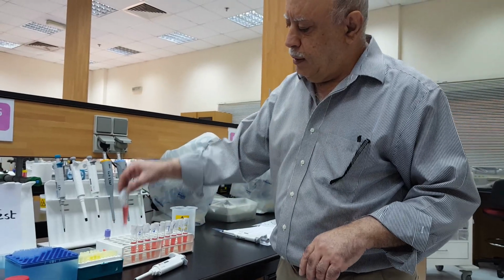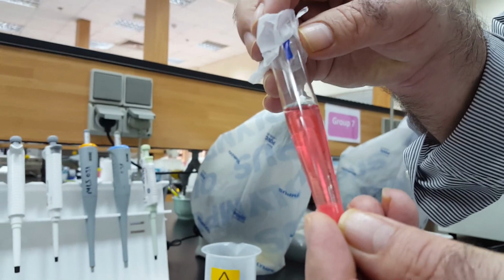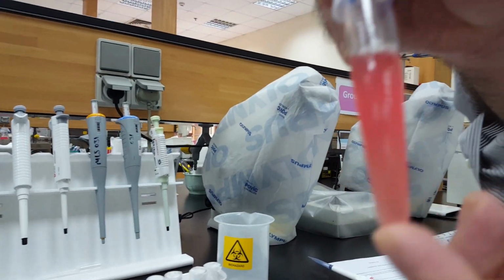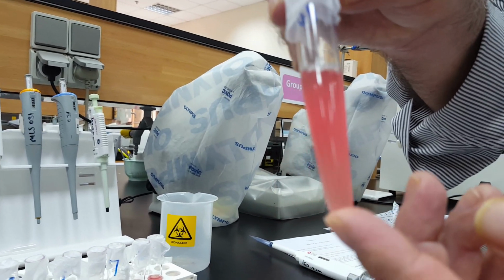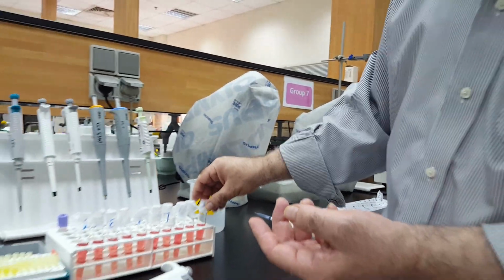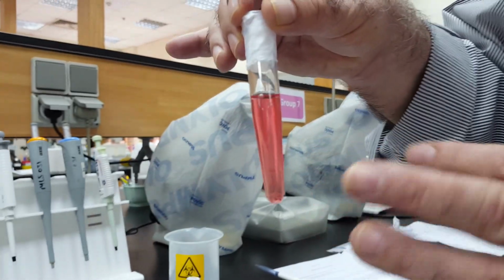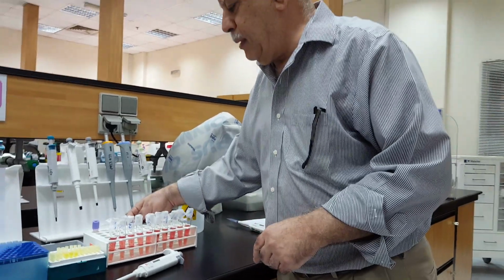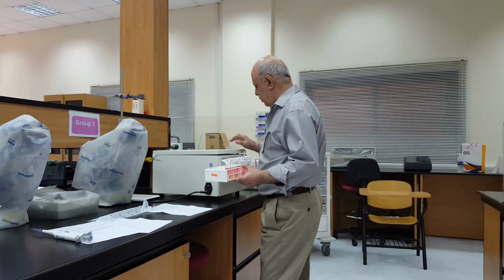If you notice, this is a clear number 1. This means it's 100% hemolysis. Here, it's cloudy, meaning the cells are not lysed, as expected, because this is hypertonic. Now, as it lies in these here, 50-50, and let's see how it goes, all right? Now, after 10 minutes has passed, we take it to the centrifuge.